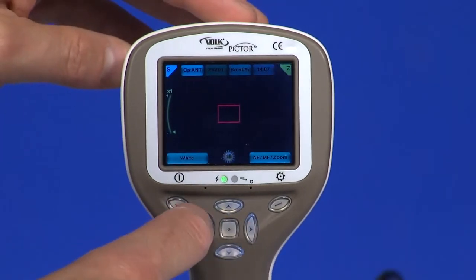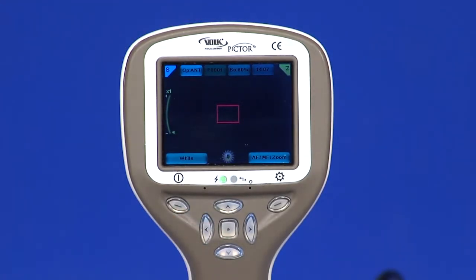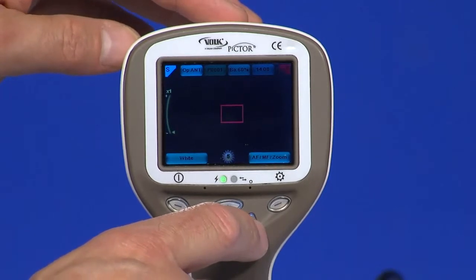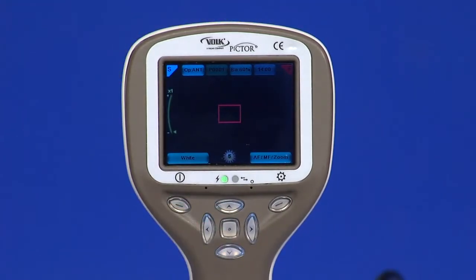Use the left and right arrow keys to adjust the camera light brightness. Aiming light brightness is adjusted in the menu. Move the focus window left and right after pressing the middle key to activate. The window returns to the original position when the camera is put in the cradle, turned off, or a module is detached.